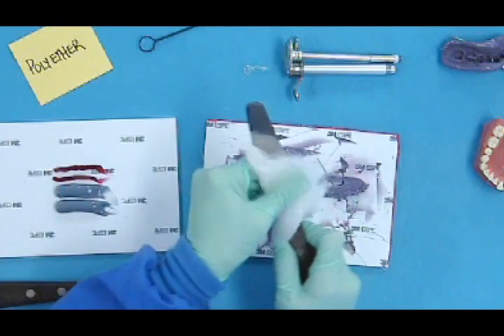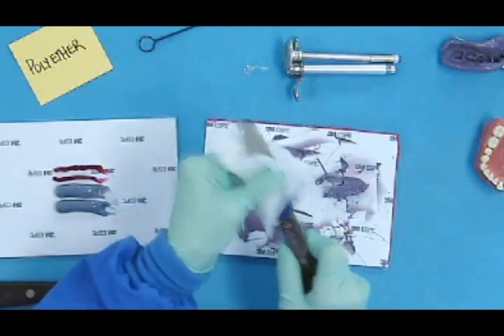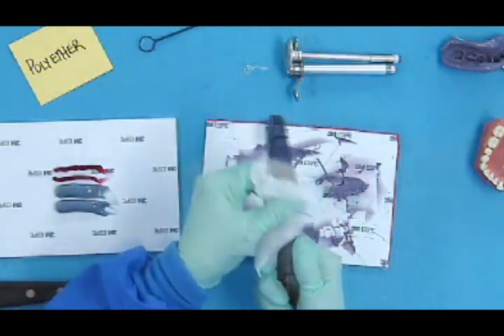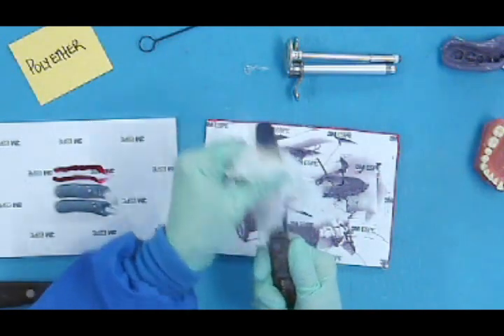As you can see, it has an oily base or oily sheen to it. But it helps break down the bond with the material, the adhesive, I mean not the adhesive, the impression material has to the spatula.